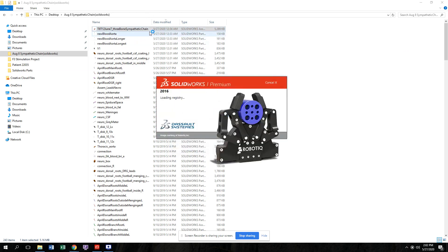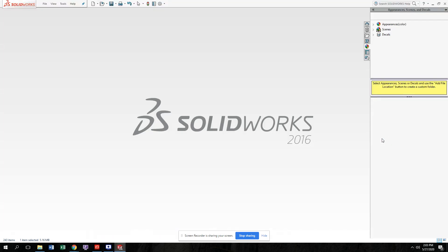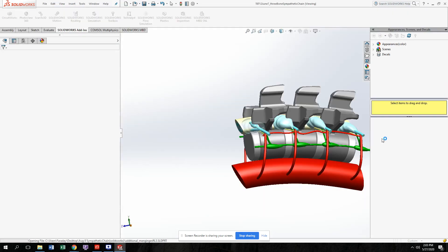I'm opening up the assembly file. These are all the SolidWorks parts which were assembled in this file. This model contains realistic anatomy of the spinal cord that includes detailed spinal structures, specific tissue compartments, and vasculature. This model can be used to simulate various high-frequency spinal cord stimulation, DRG stimulation, and even conventional stimulation.